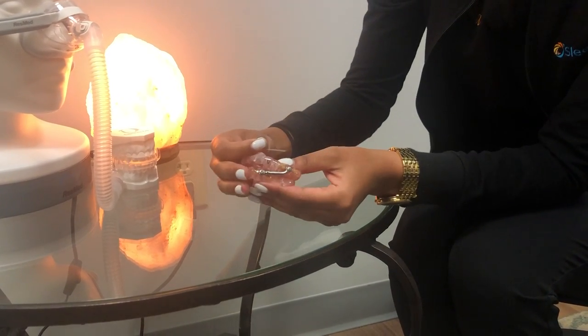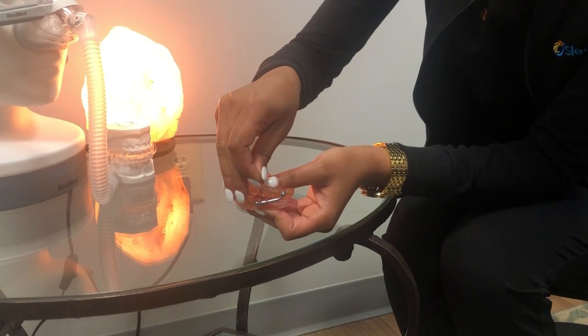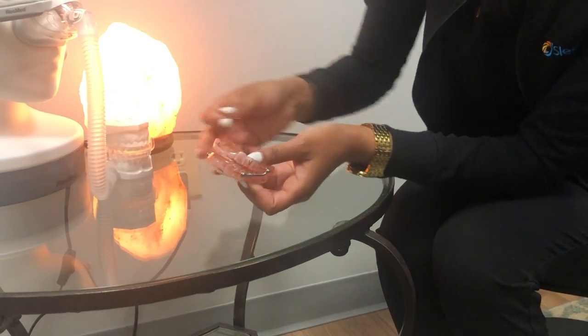On this side you're going from the top to the bottom, so you'll stick the key in the top hole just like so, and you'll make a full turn all the way to the bottom. There you have it.